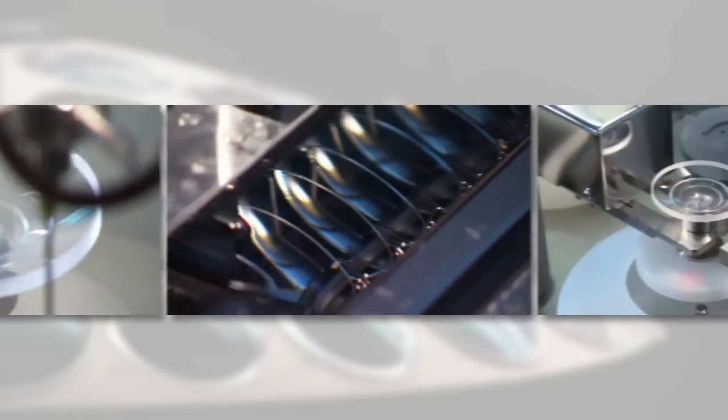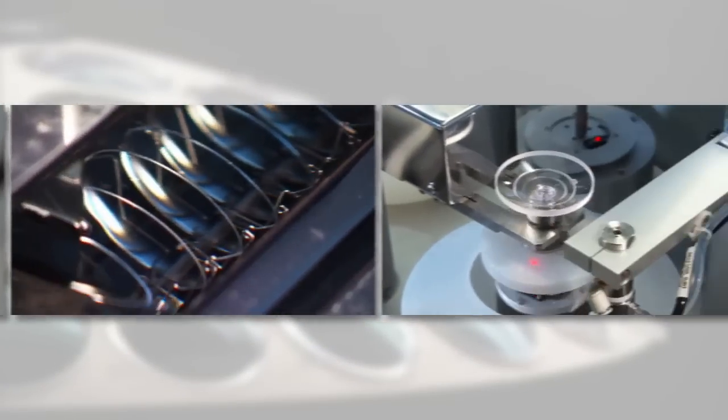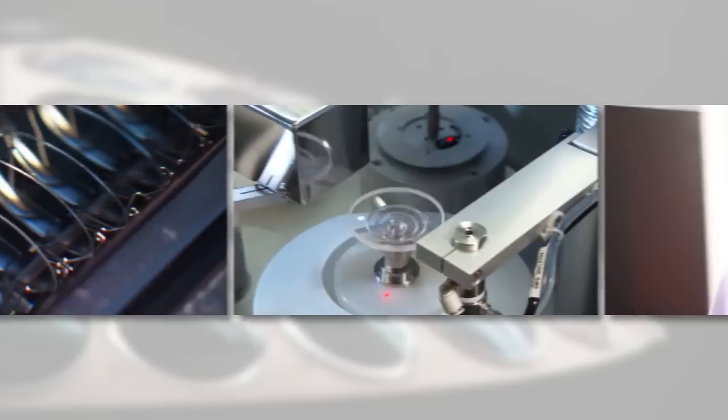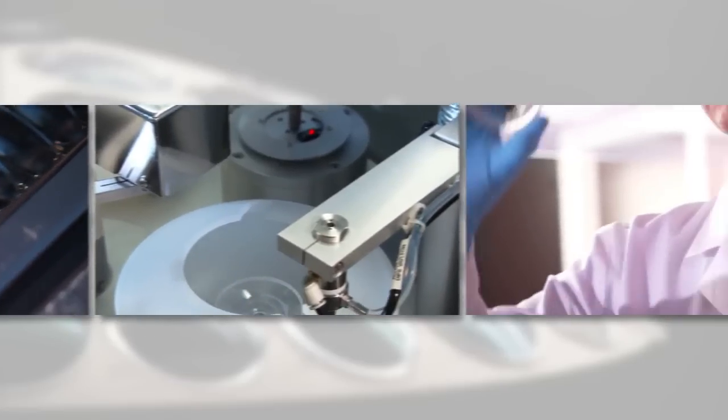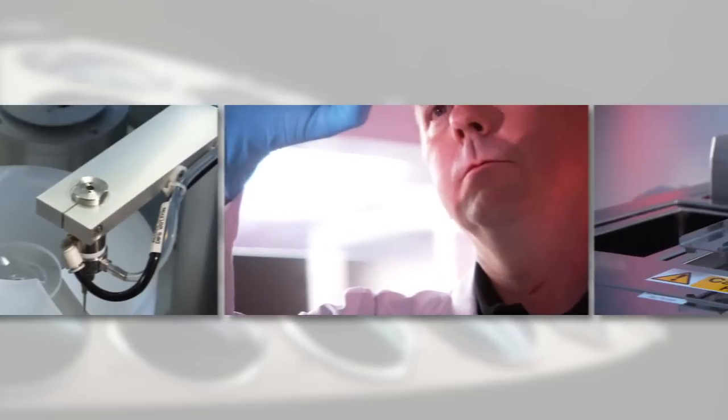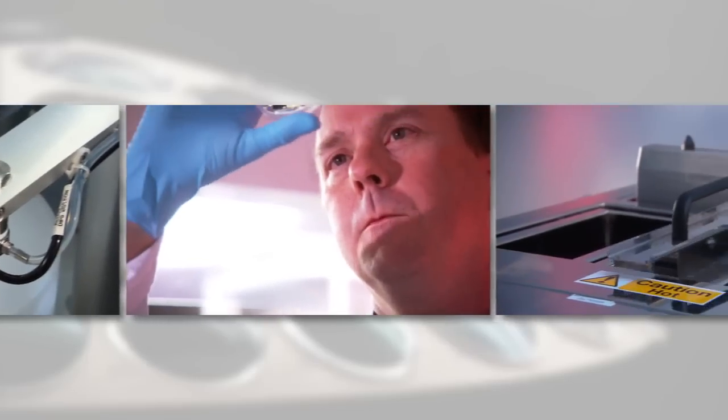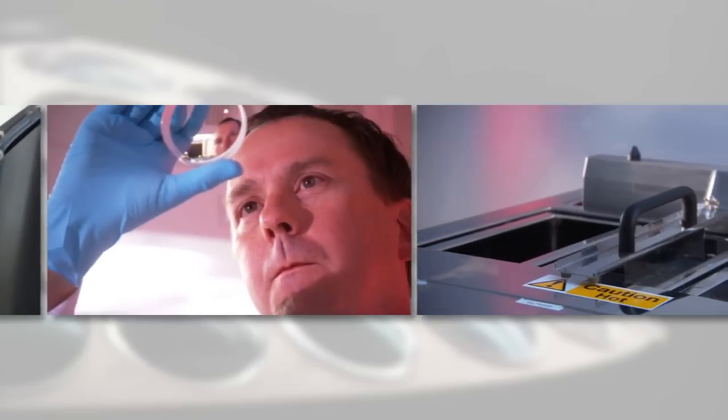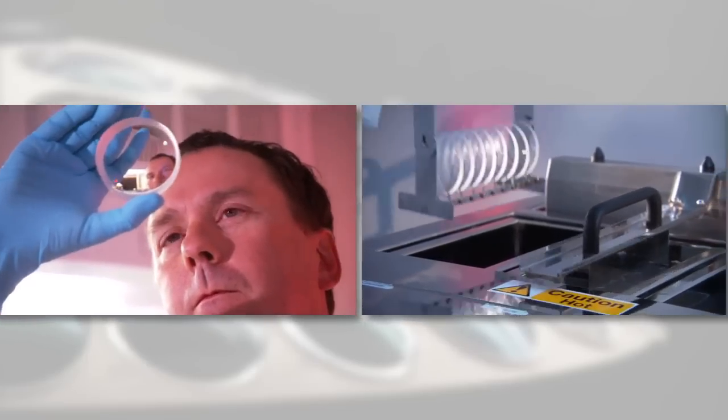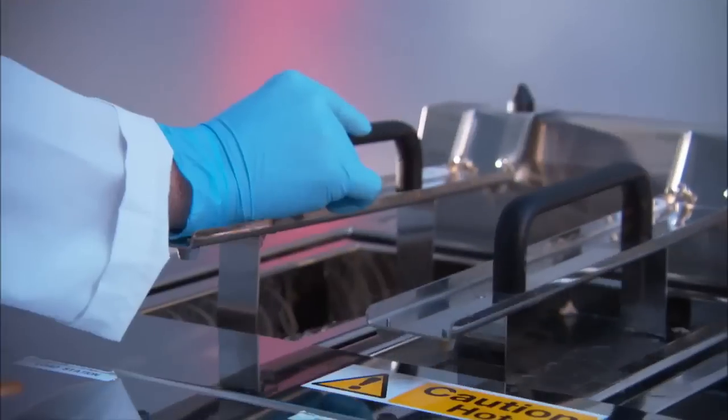The Crizal Technology Center resides in a specially constructed portion of the lab facility that is designed to maintain a clean environment appropriate to such an advanced technology.